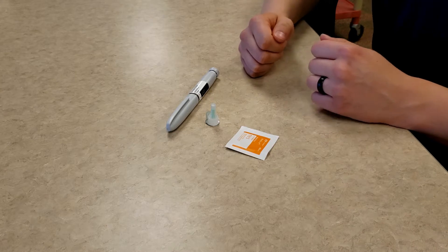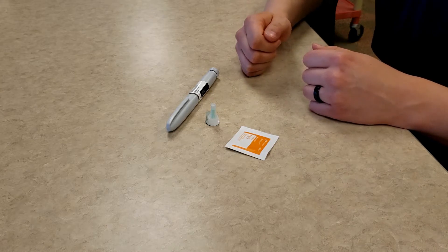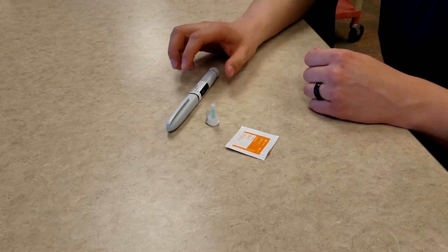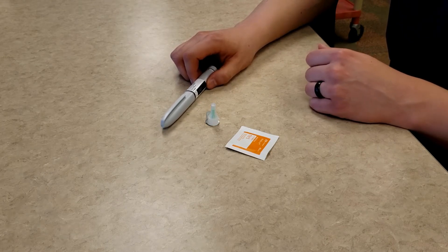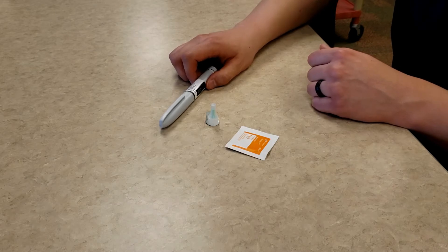Before I get started, I want to make sure that you have the correct supplies. The first item you need is the insulin pen. Do not start this process until you have clear instructions from your healthcare professional for taking your insulin. You need to know your exact prescription.